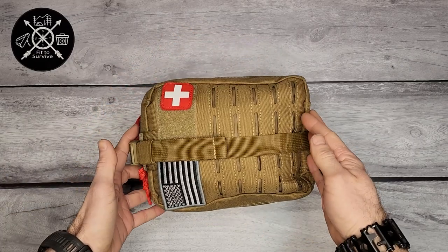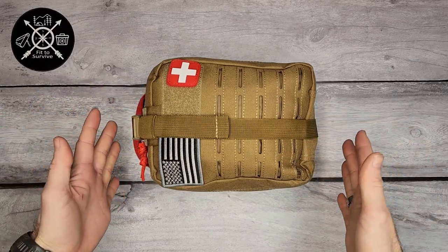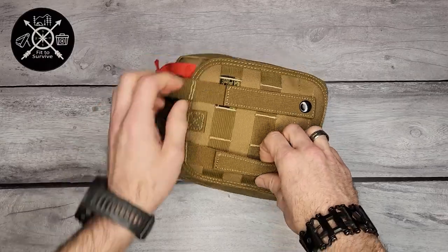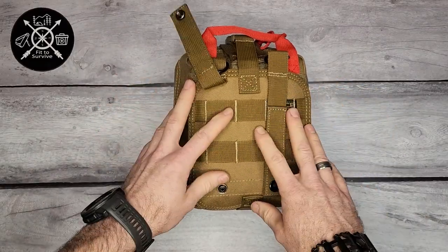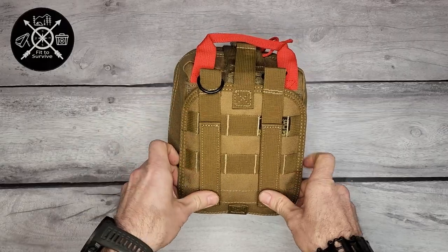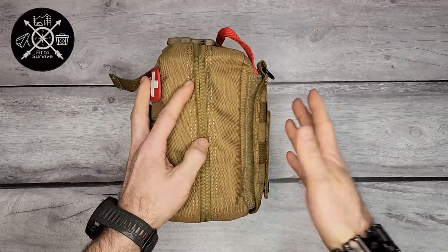This is what I would consider between medium to large as far as trauma kits go. I know you can get backpack-sized kits, but this is still something you could wear on your belt. On the back you have these snaps, so you can easily attach this to your belt or to a backpack that has the MOLLE system.